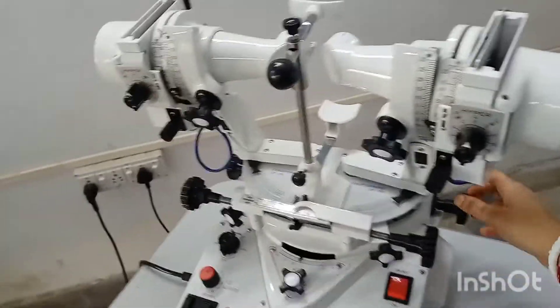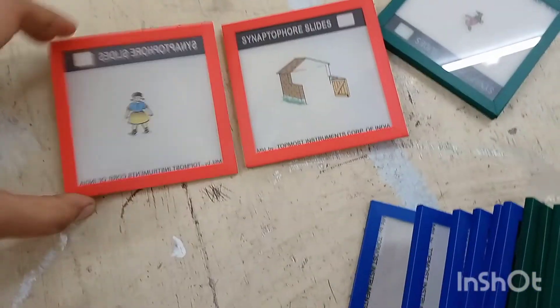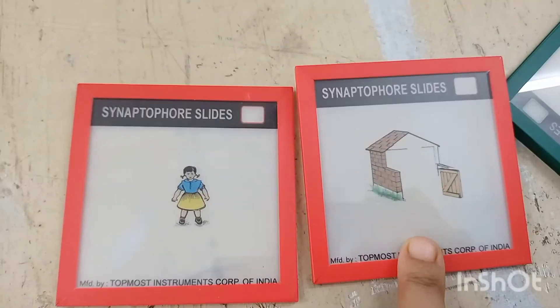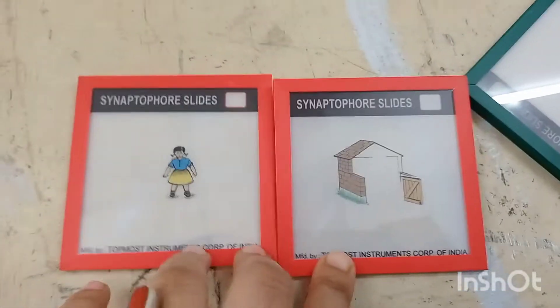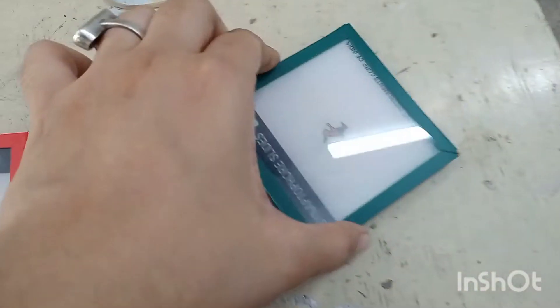First comes the simultaneous macular perception slides, used to test the objective and subjective angle of deviation. You can see that the girl is there. When one slide is placed in front of each eye, the girl should be inside the house. If not, the patient has to bring the girl inside the house. This is the simultaneous macular perception slide.